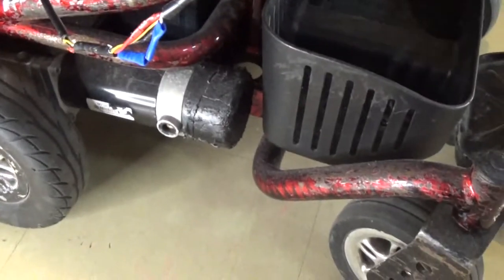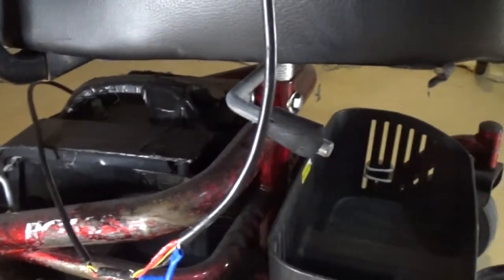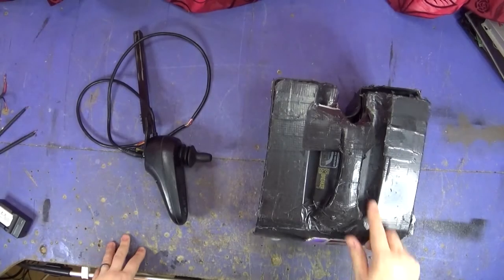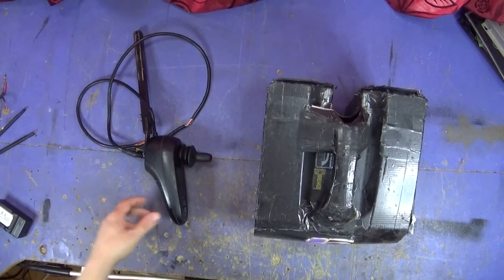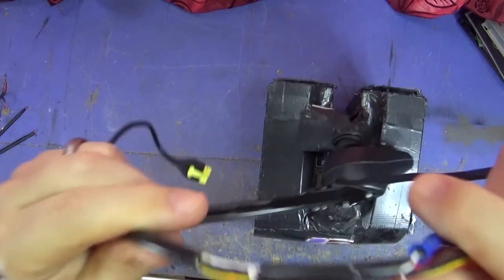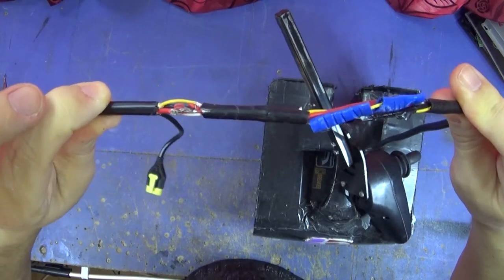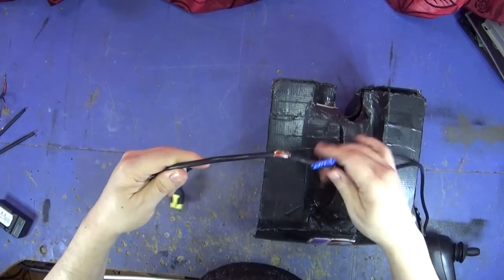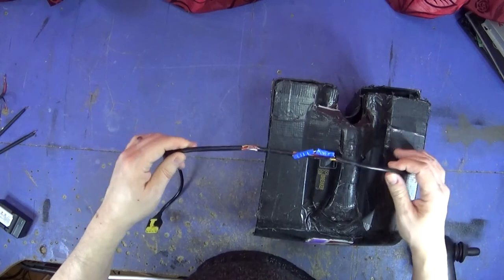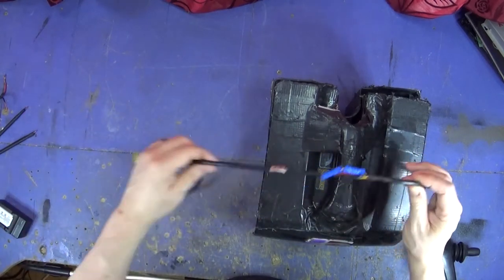It is beaten up really badly — scratched, dented, and starting to go rusty. So there's a lot of work to do. I'll get my minions to take this apart and put all the bits on the desk. This is the battery box and the joystick command module. This wire has been sheared really badly. I think I'll cut this section off and add a longer section, because it looks like the seat plops down and catches it — a really clever design problem. I might see about lengthening this wire and zip-tying it along things so that doesn't happen again.